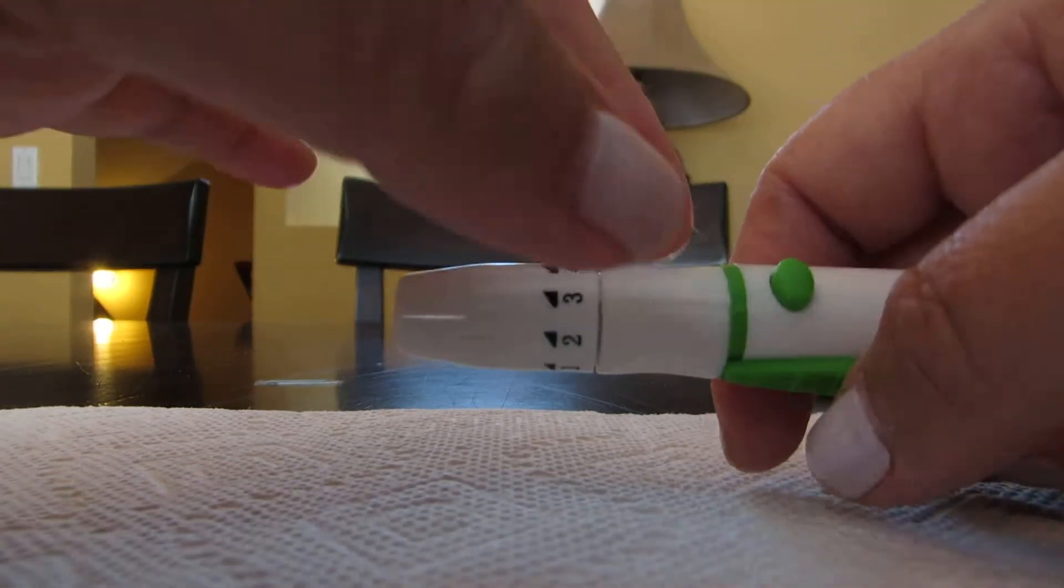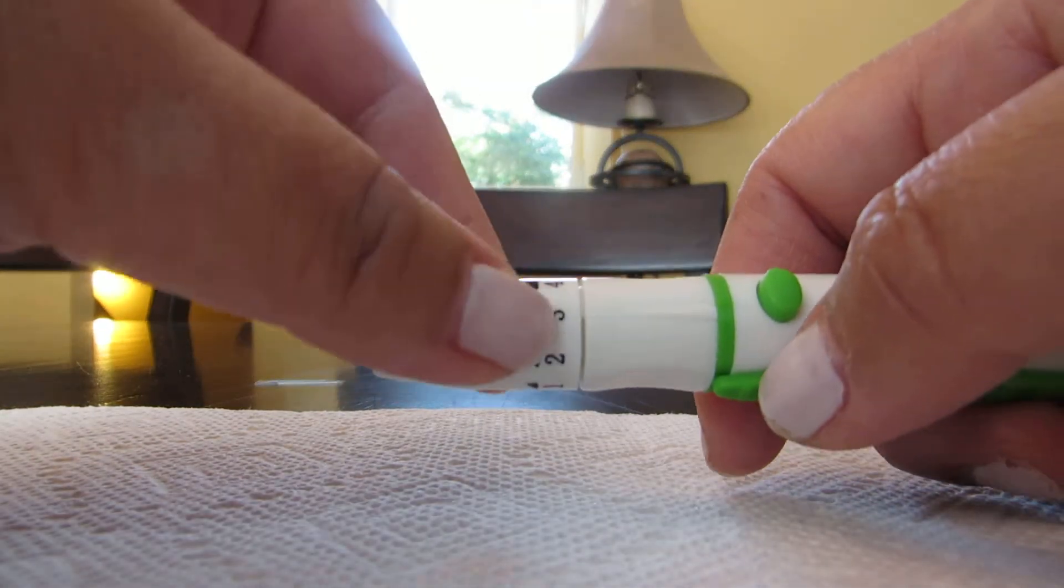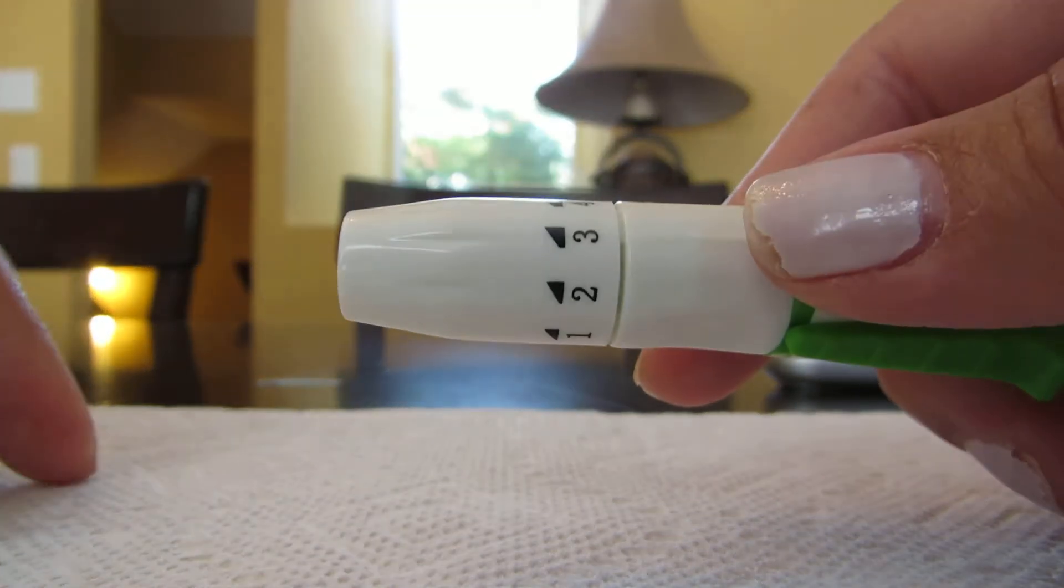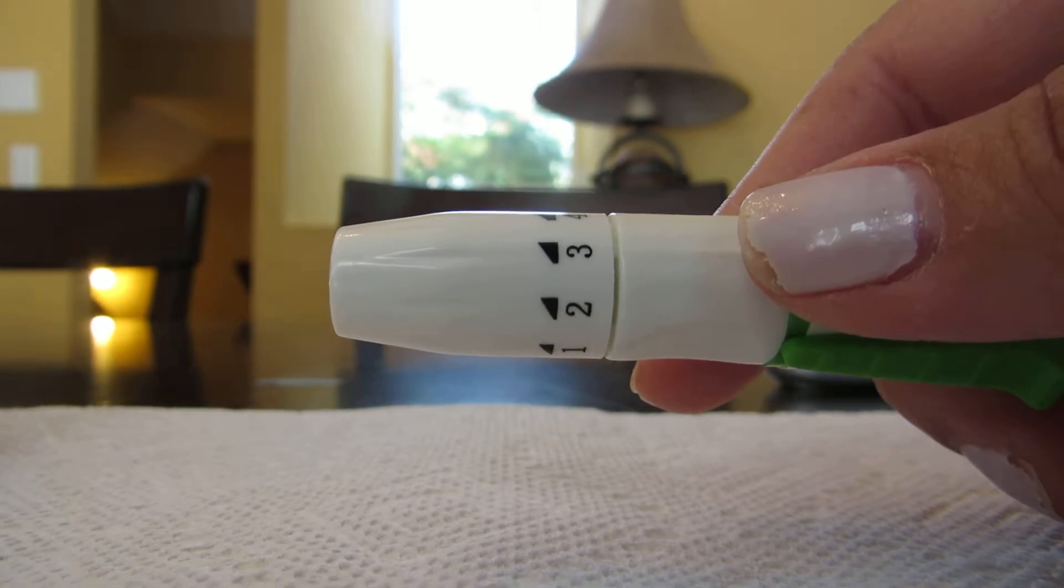The ones that don't have levels usually go the deepest and tend to pinch a little bit, but you get used to it, no big deal.